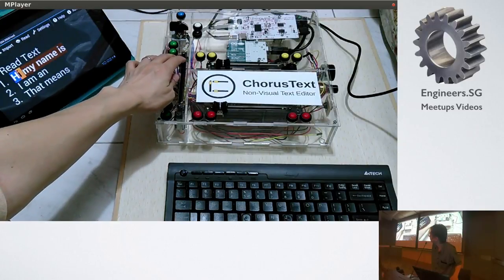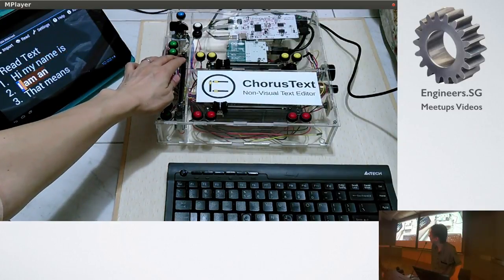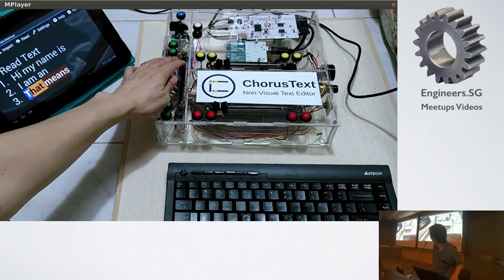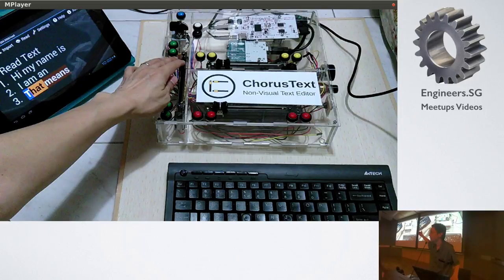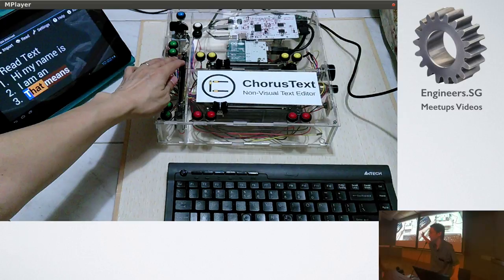Hi. My name is David. I'm an open assistive device. So as I slide the slider, the line slider from the first line, the second line, the third line, it reads out the content of the first line, the second line, the third line. Right? Just read the whole line.